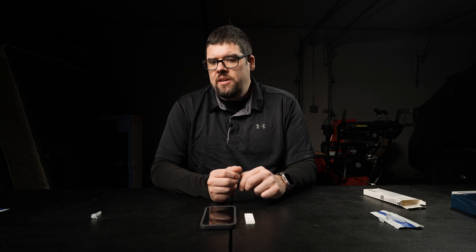My doctor put me on the pill form medication because he is concerned about my heart condition. Hopefully this video helped you get your test results as quick as possible. If you want to check out another one of my how-to COVID test videos, I'll put one up here, or my playlist. I bought this on Amazon — I'll put a link in my description if you want to get this test for yourself. One minute is fast. Wow.